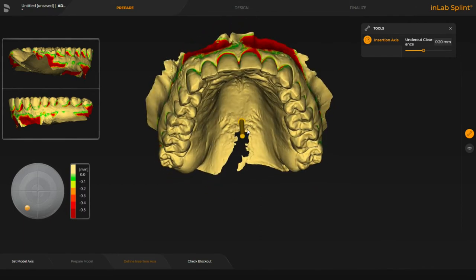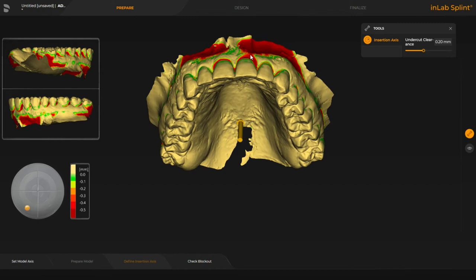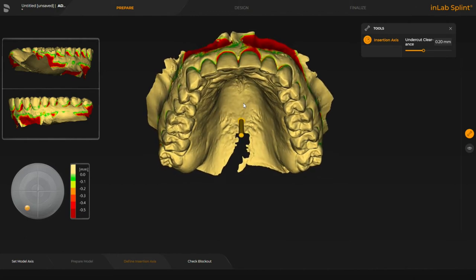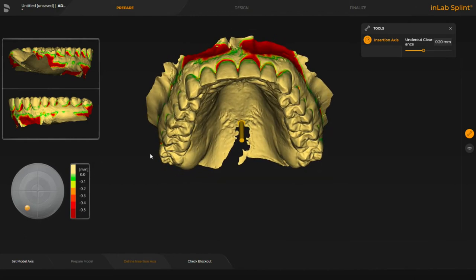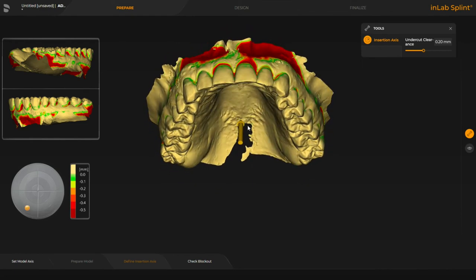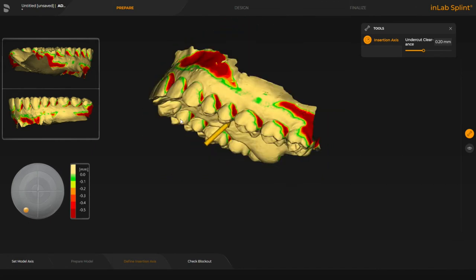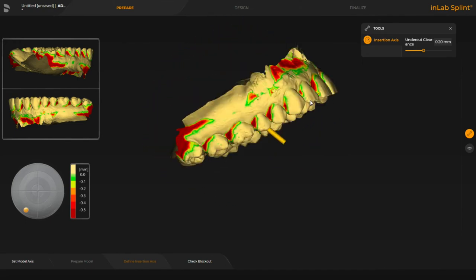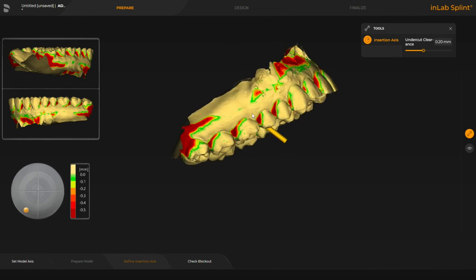What I would suggest is try to have it so that you don't have a gap like that — that's just going to cause problems. The nice thing about doing it this way is that we don't have to move it, then select it with the view, and keep going back and forth to see the problems. We can just move so we can see where the problem is and then tilt and make slight little adjustments. Now we've got rid of those buccal undercuts, but we still have undercuts in a different direction, and the reason I like that is that when the insertion axis comes in at a different angle than the occlusal direction it helps retention a little bit.